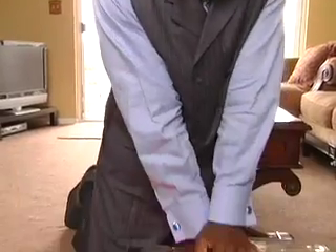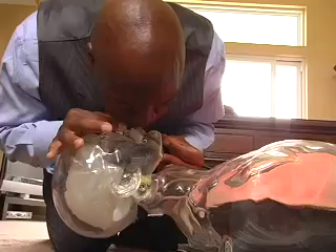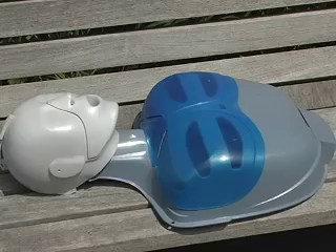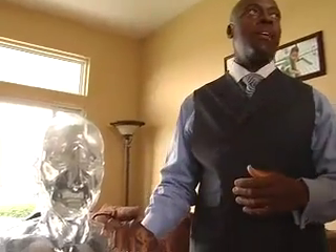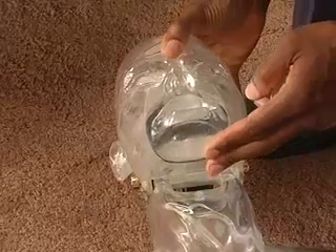O'Neill Clash has been saving lives through cardiopulmonary resuscitation for nearly 20 years and teaching others to do the same. Clash says he thinks the current CPR mannequins are outdated. That's when he invented TransProto Maximilian — a transparent mannequin so you can see what goes on inside the body. Clash hopes TransProto will become the future of CPR devices.